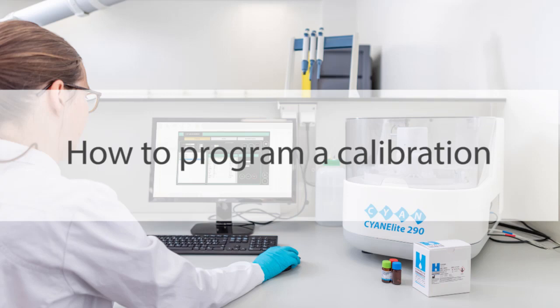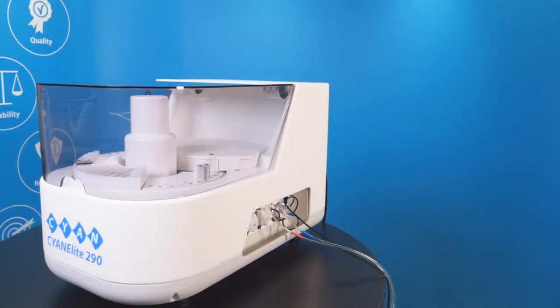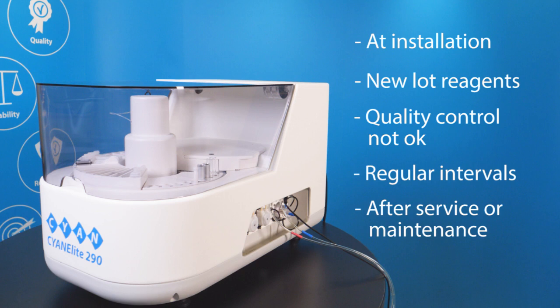Calibration is essential because it instructs the analyzer how to transform optical density values into a concentration of the measured analyte. It is fundamental for producing conclusive clinical results. Good laboratory practice recommends performing a calibration at installation of the analyzer, when a new lot of reagents is used, when quality control measurements are outside the limits, at intervals required by the method, and after service maintenance or after a repair on the analyzer.